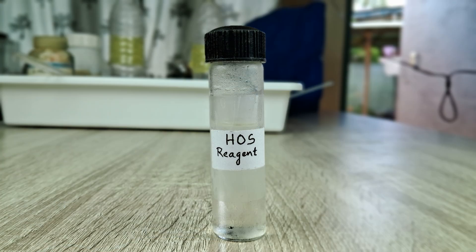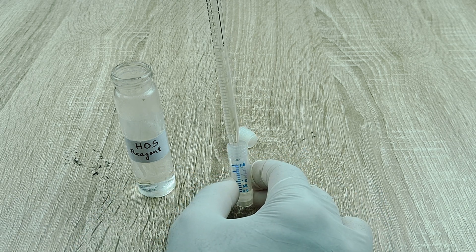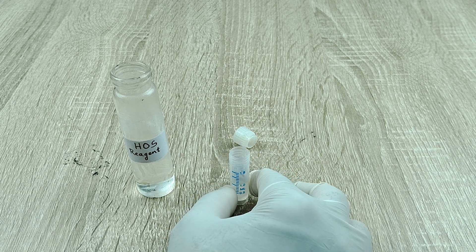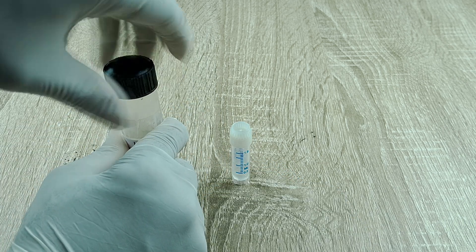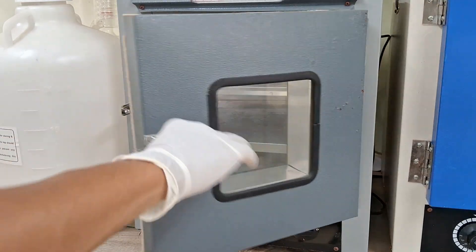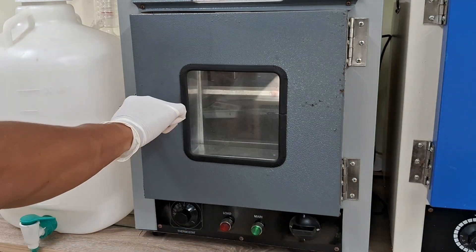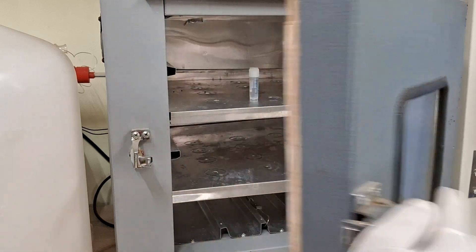To perform the HOS test, first remove the HOS reagent from the refrigerator and pipette out 1 ml of the reagent into the Eppendorf tube or vial. Incubate the tube at 37°C for 10 minutes, then remove the tube from the incubator.